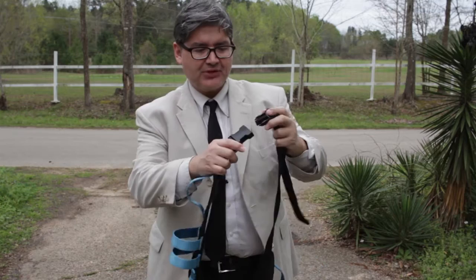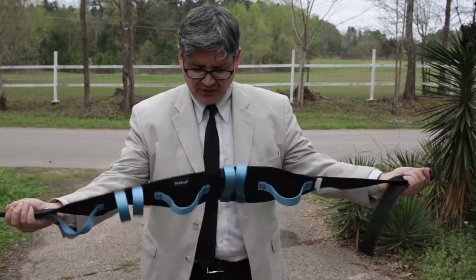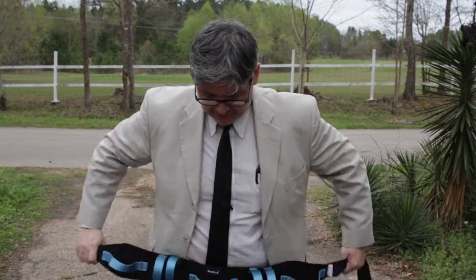This particular model here has a place you can fasten it on like this, and there are some that have metal brackets on it. This seems to be really strong enough as it is. There are seven places to grab a hold of.